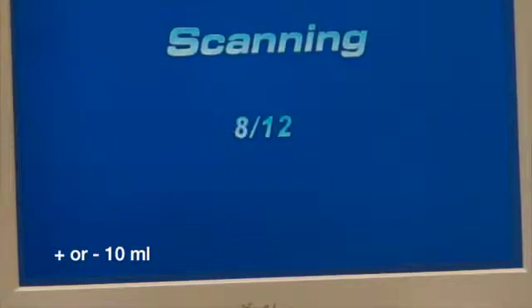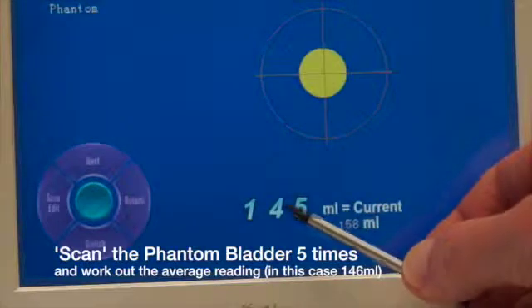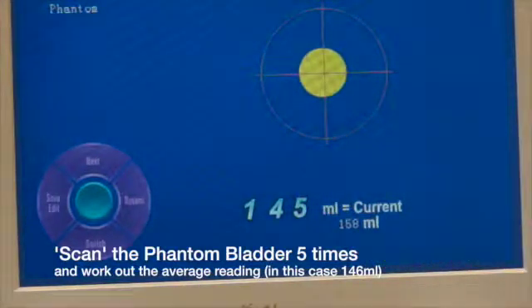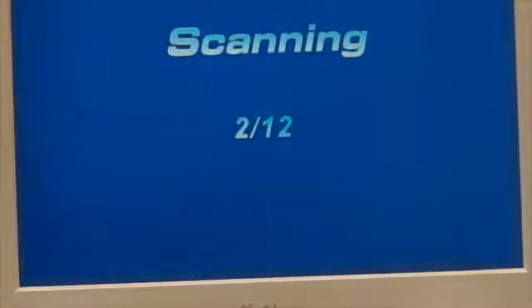With this scan, we're demonstrating a machine that is in need of calibration, and you'll see the results shown as being outside of limits. The procedure here is to carry out five scans, write down the results, and then calculate the average.